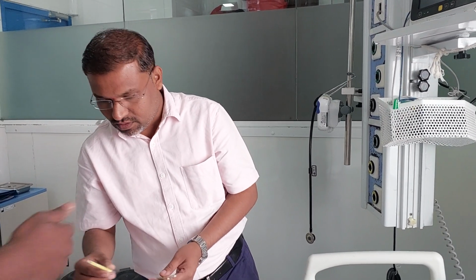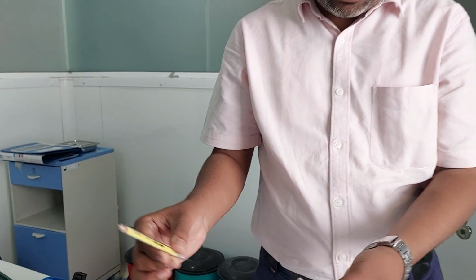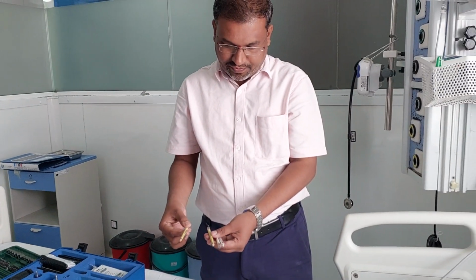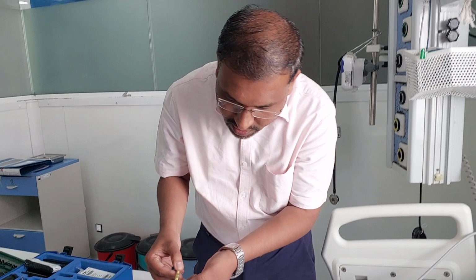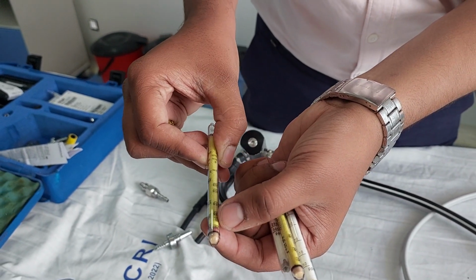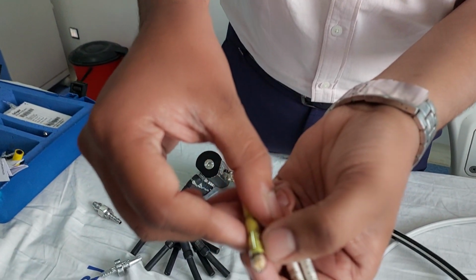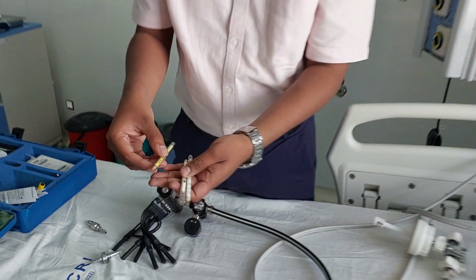With the help of such tubes you can see the color change. This one is for the air, right? You can make the comparison also. Can you observe? This is a change in color, right? But the value is only 35, which is permissible. But for the oxygen, it's a very small one, negligible. That means there is no content inside the oxygen. So in this way you can check the purity of the oxygen supply at the end point, right? Thank you.